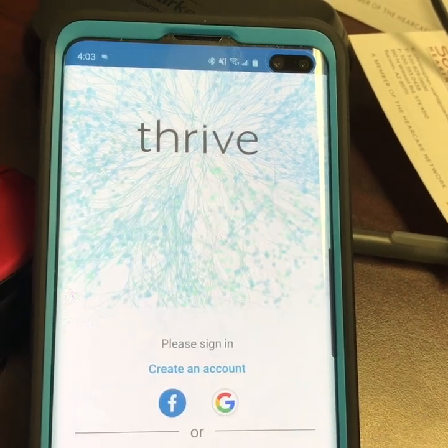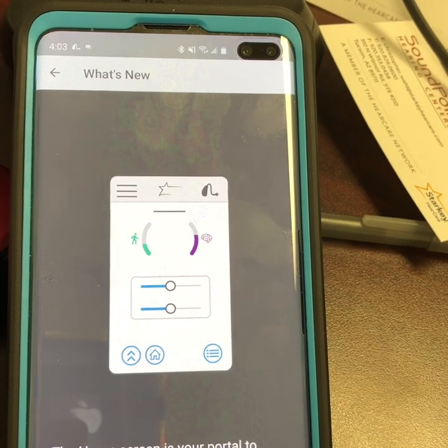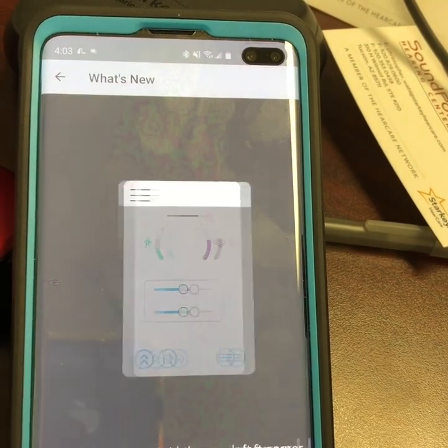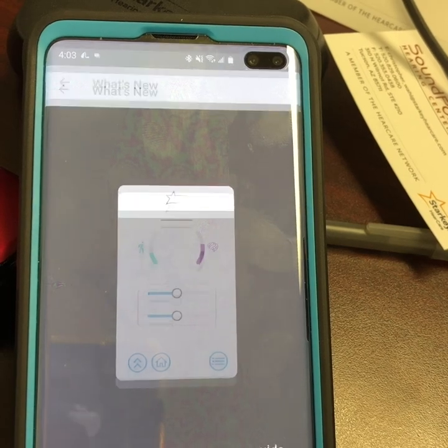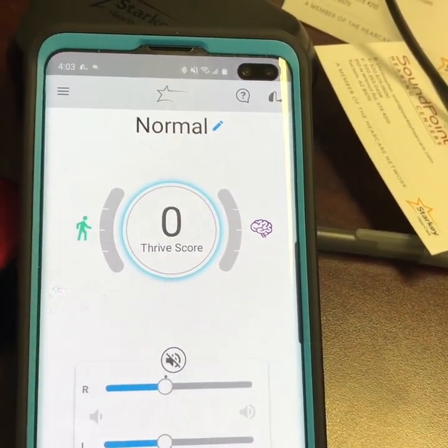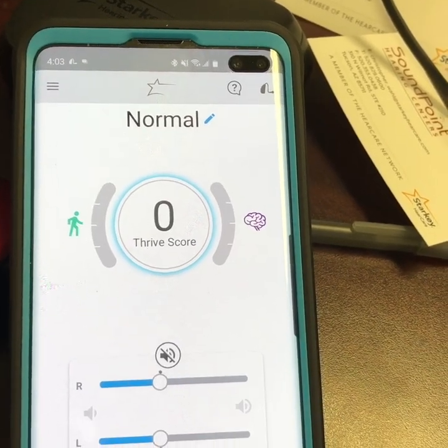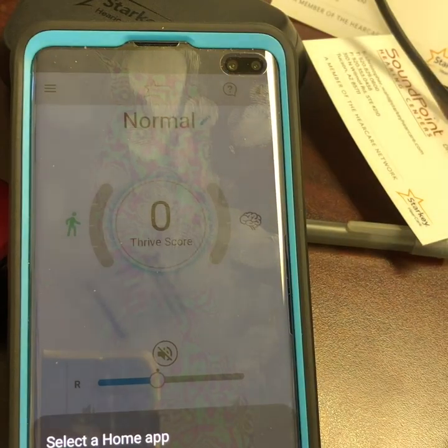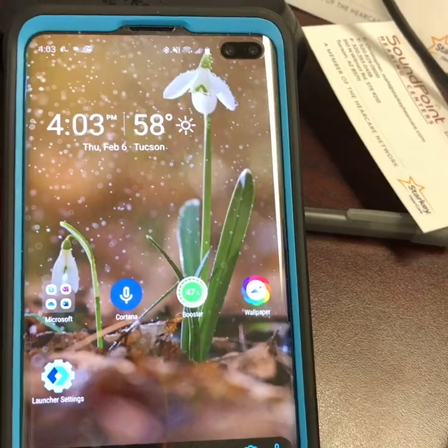Select the mode — Advanced. You can skip this step or fill it in and read about it. These are things you can do with the app. And there you're in. Turn up and down the volume and access features. I'll post other videos about how to use this particular app, but as you can see it's working great. You can make phone calls with it.